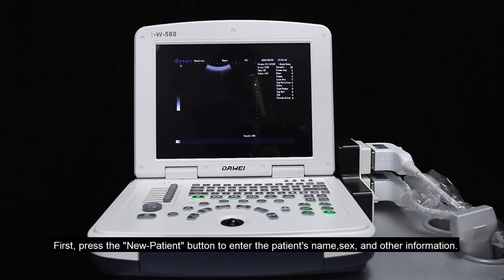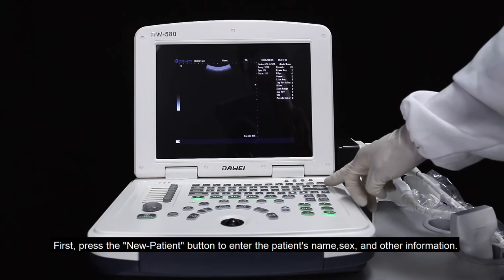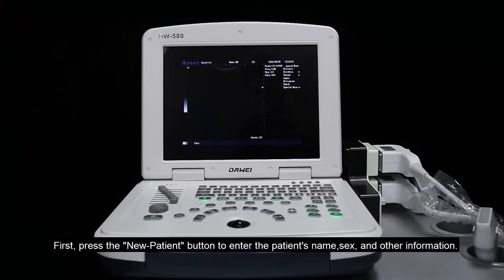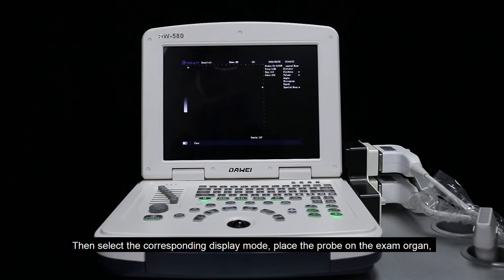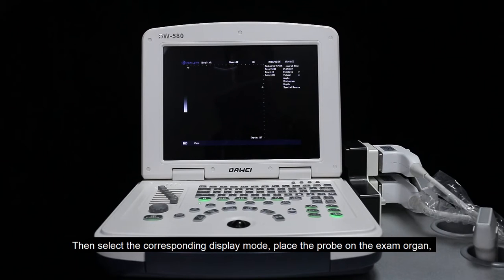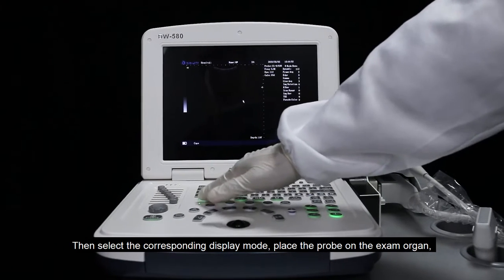First, press the new patient button to enter the patient's name, sex, and other information. Then select the corresponding display mode.